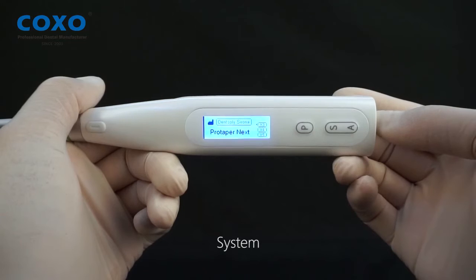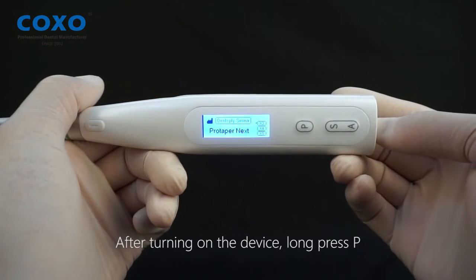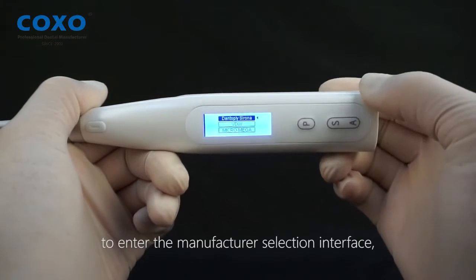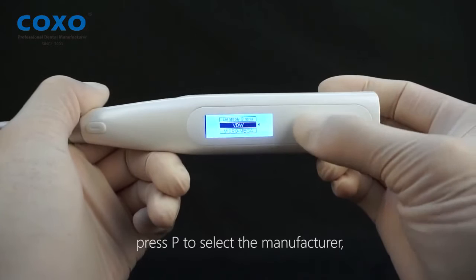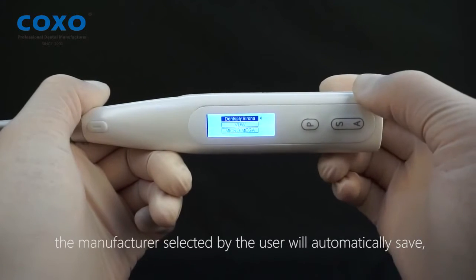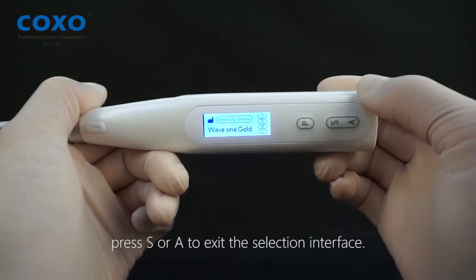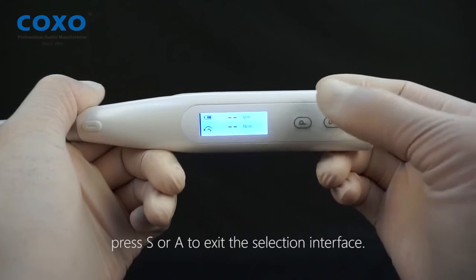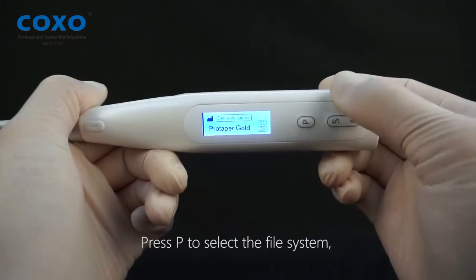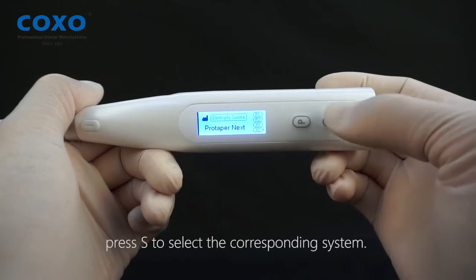System settings. After turning on the device, long press P to enter the manufacturer selection interface. Press P to select the manufacturer — the selected manufacturer will be automatically saved. Press S or A to exit the selection interface. Press P to select the file system, then press S to select the corresponding system.